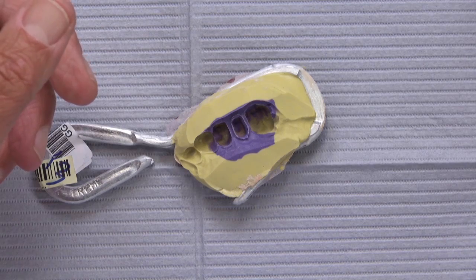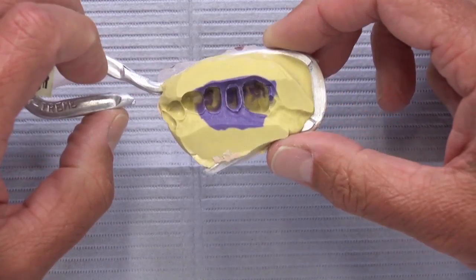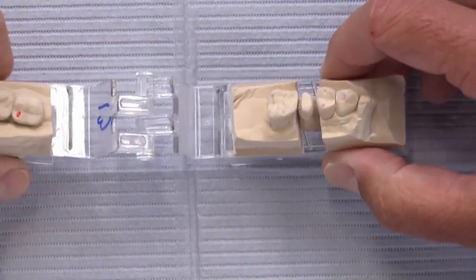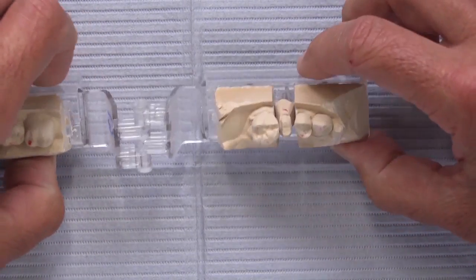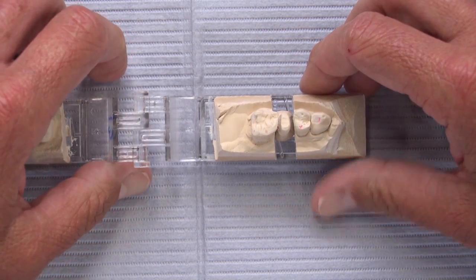Because of the digital technology we have, every time we receive an impression like this we pour it in dental stone, take it to the scanner, and scan it once it's in stone. Then we pour the model, put it into our model scanner, scan it, and begin working on it in the digital environment — because we love digital.